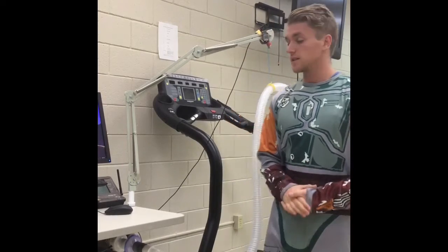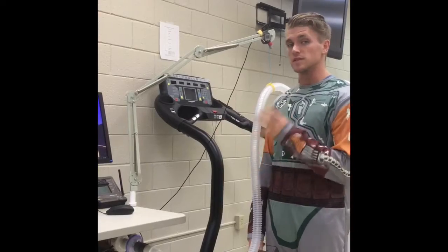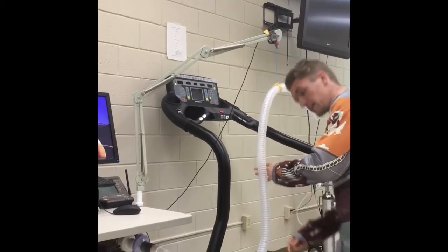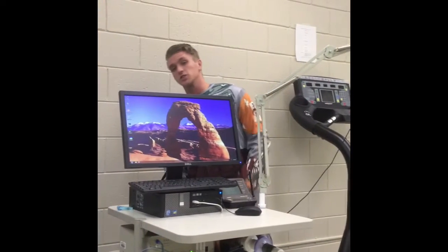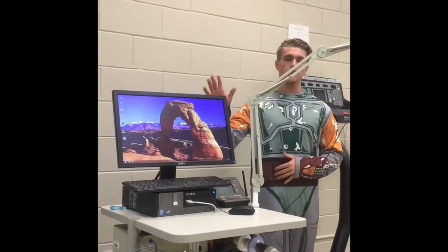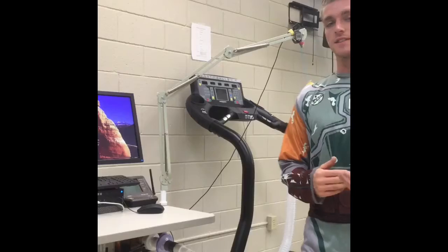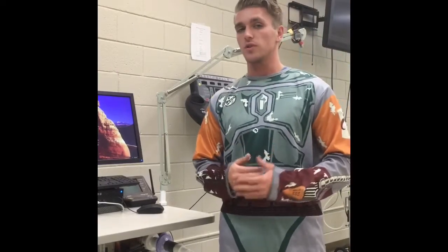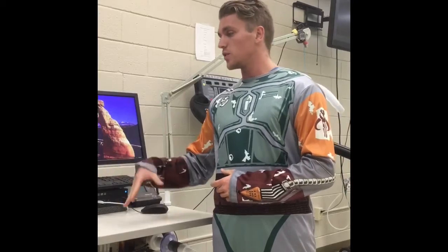After you've assembled the mask, the next step is to turn on the full CPU and Parvo itself. The switch in the back is the master switch to turn on the actual system — this will not turn on the CPU though. The Parvo takes 20 minutes to warm up, so before each test you should come up here 20 minutes early to warm up the system. After you turn that on, turn the CPU on as well.